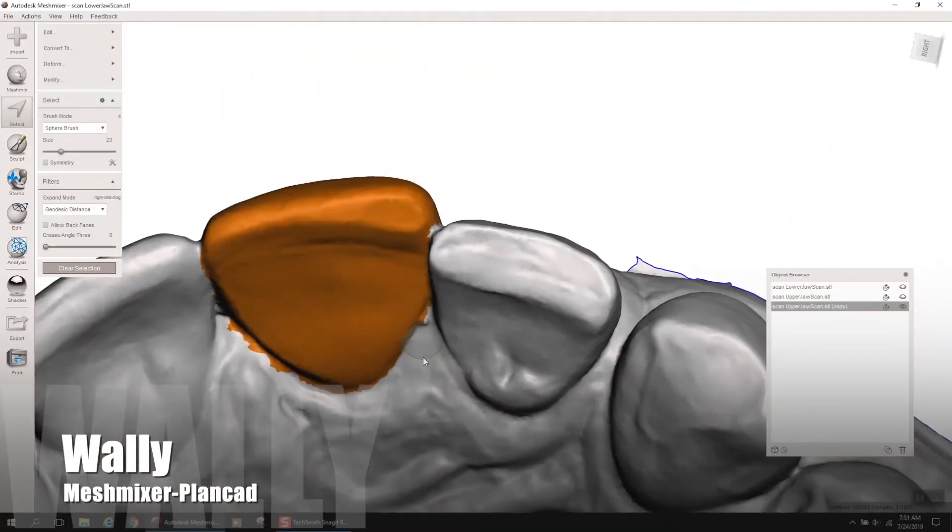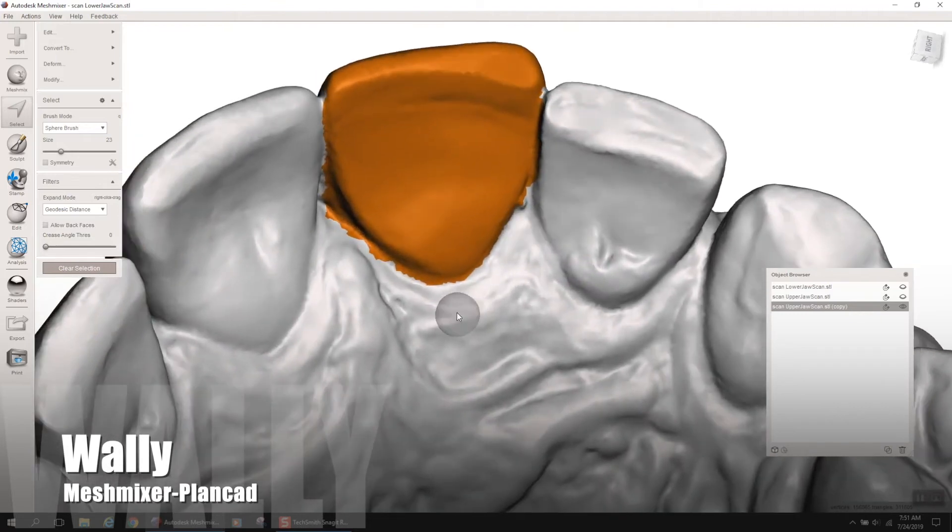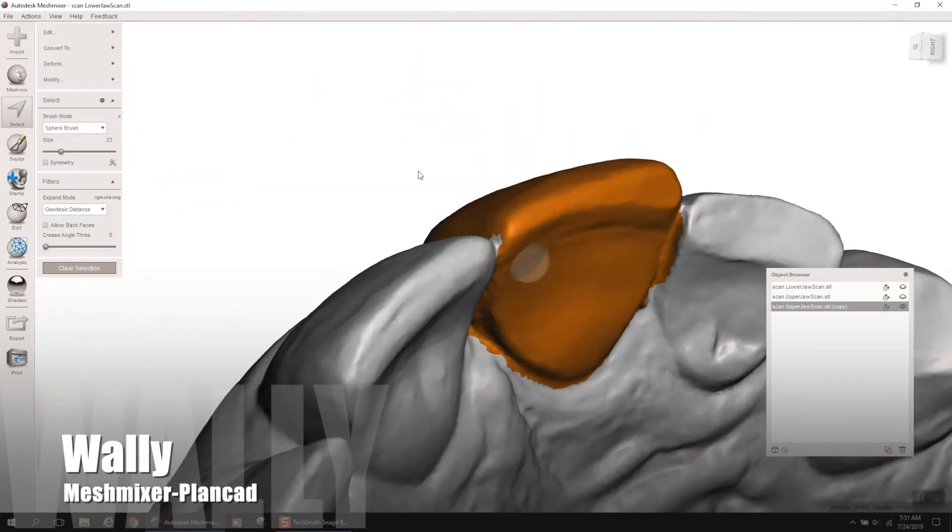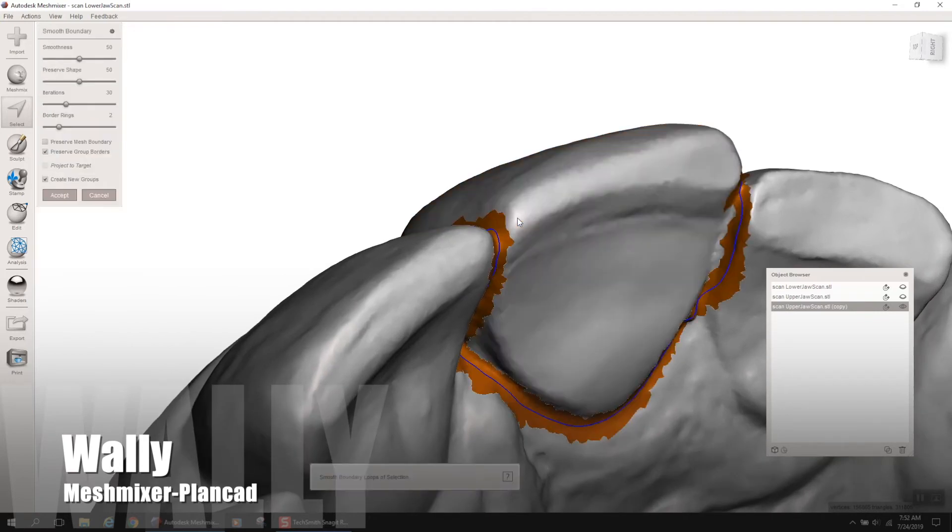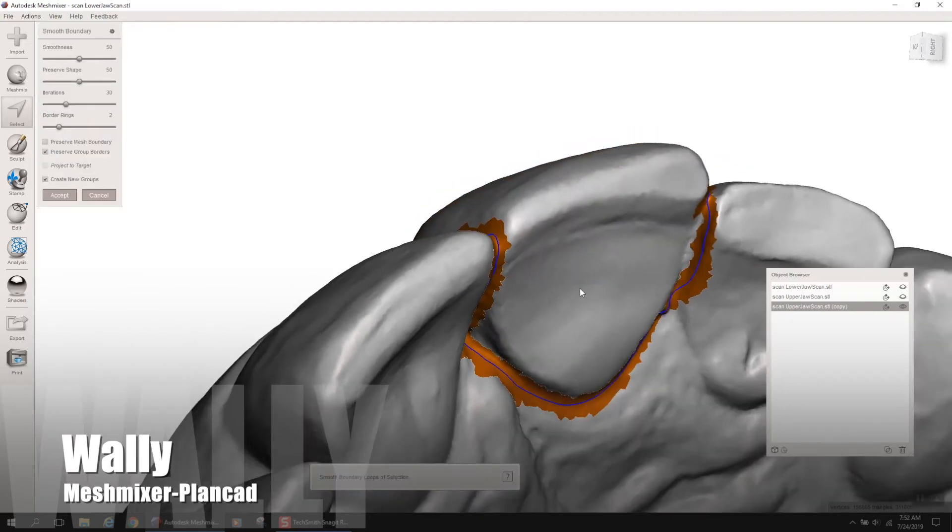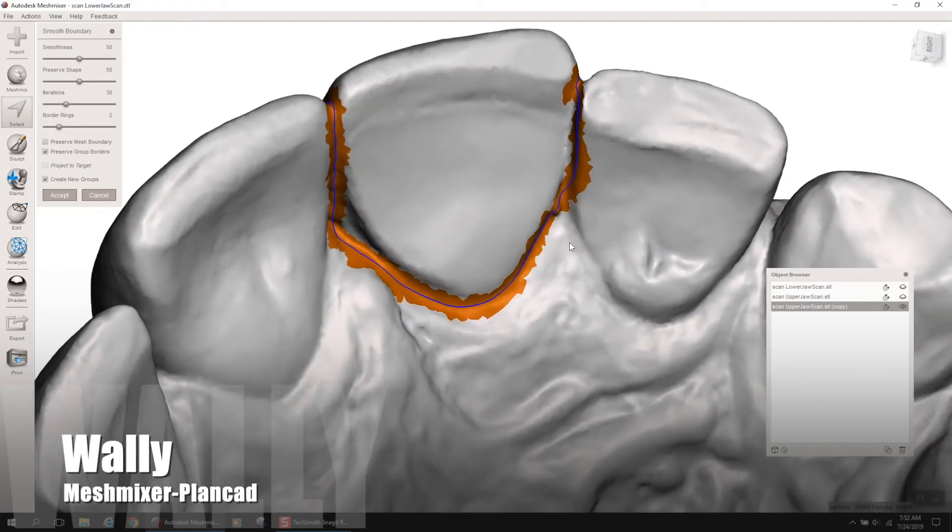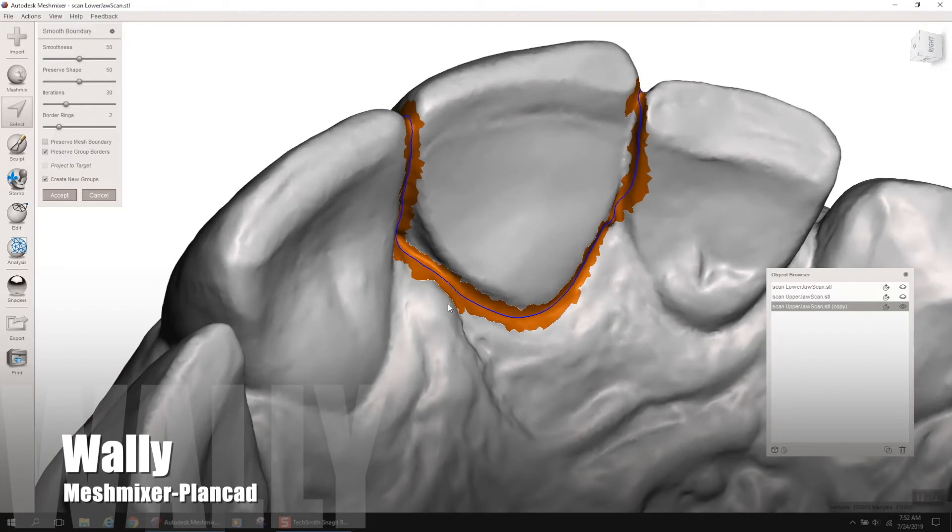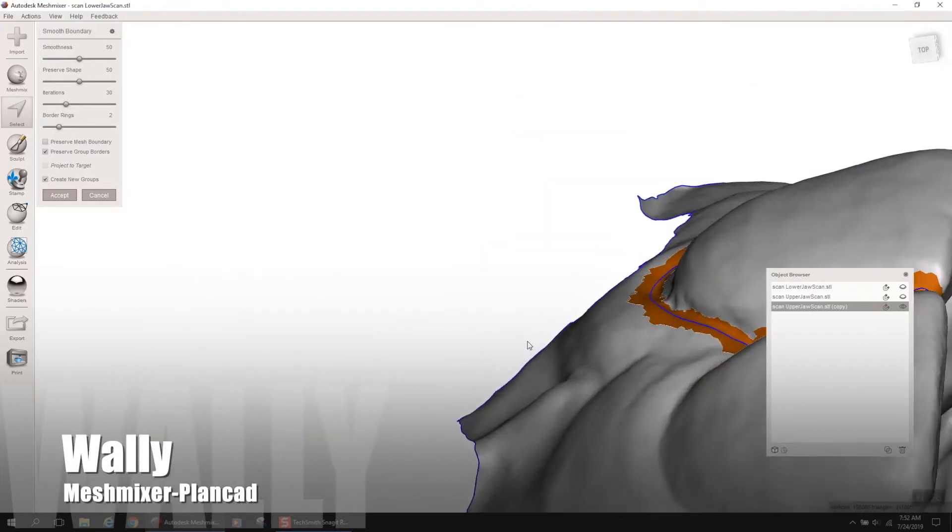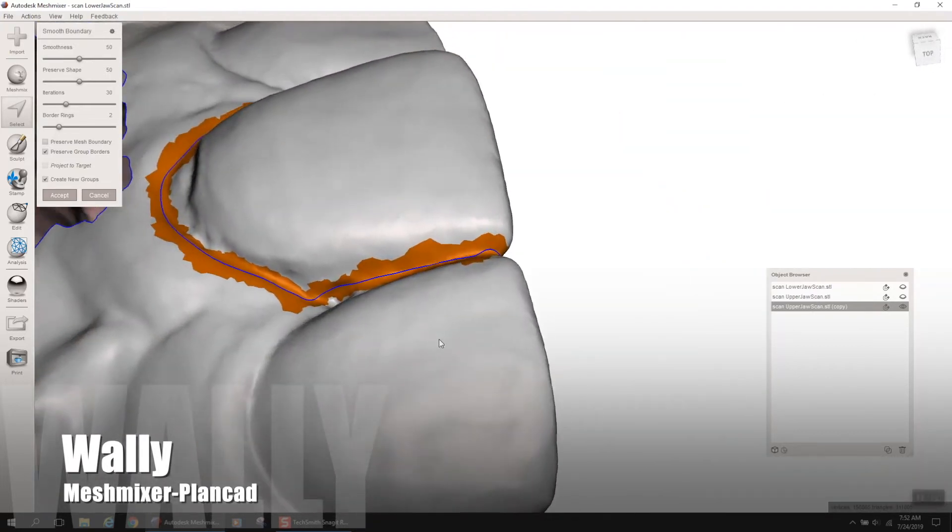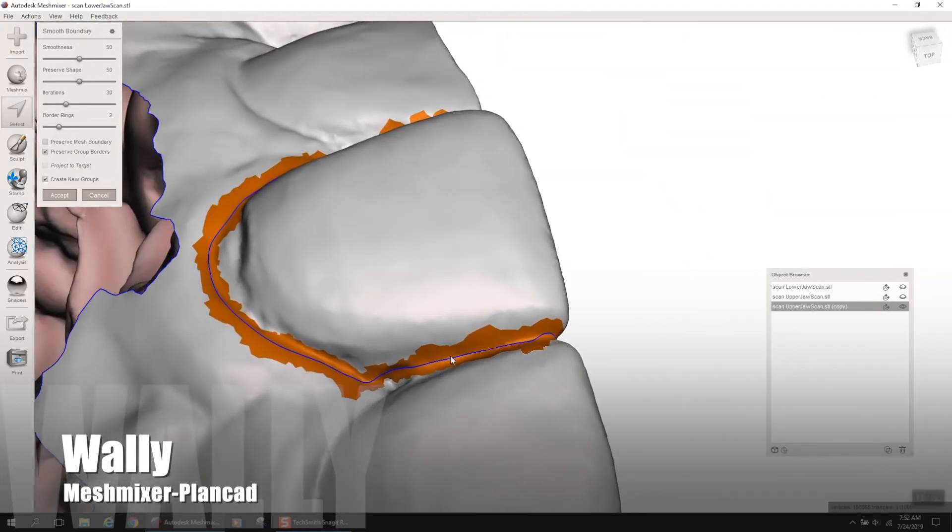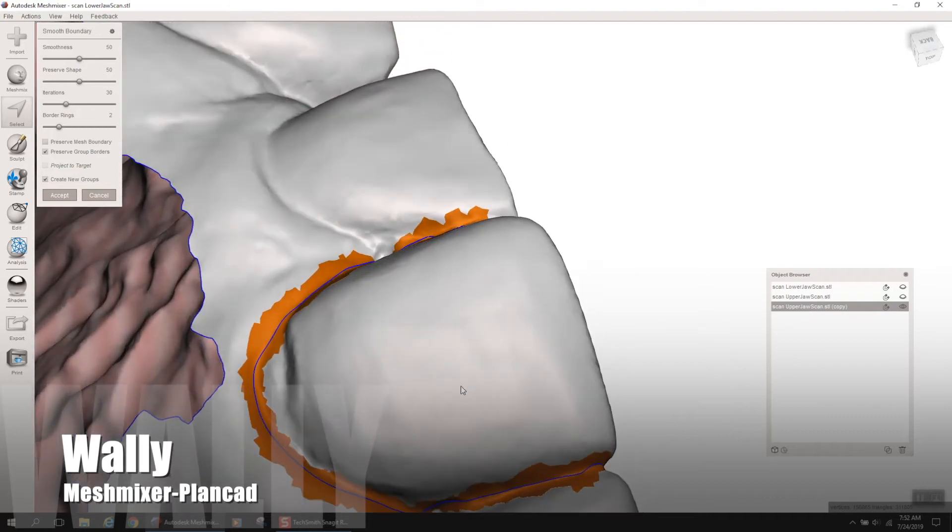So, it's somewhere, if you're getting a red tooth, then you're going to hit B again, and of course now my OCD is taking over, and I'm seeing little areas that I don't like. So, now when you hit B, what you see is a blue line splitting the difference between the jagged lines, and it's going to be a very gorgeous border. I'm also noticing, however, that there's some areas of that blue line that I don't really like.